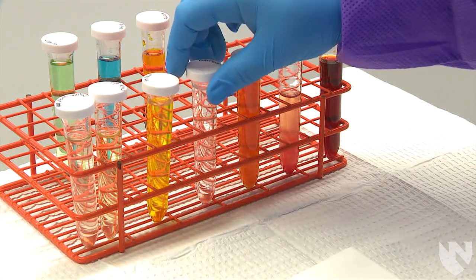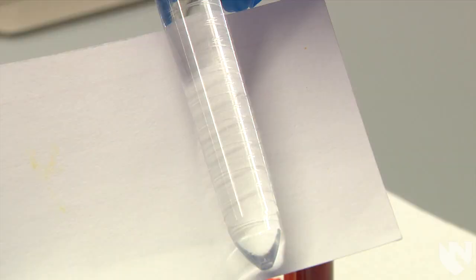Here we have a urine that looks almost like water with no shade of yellow present at all. So we will report this as colorless.